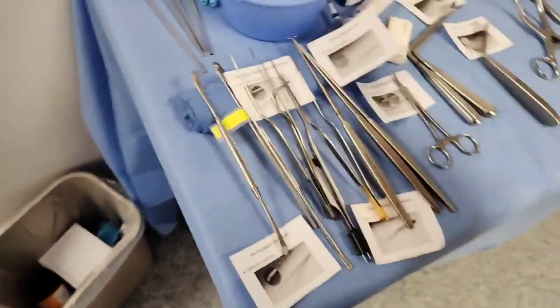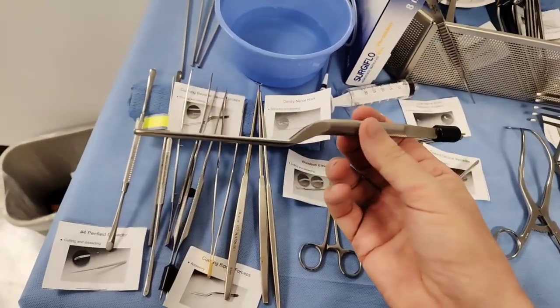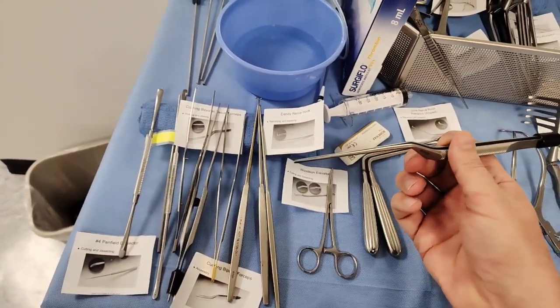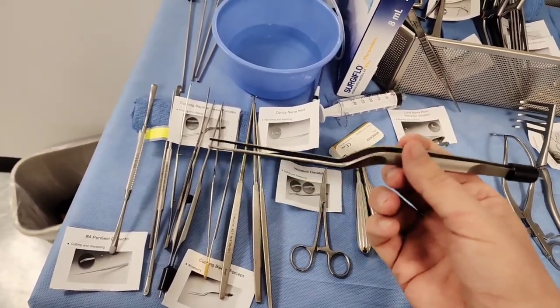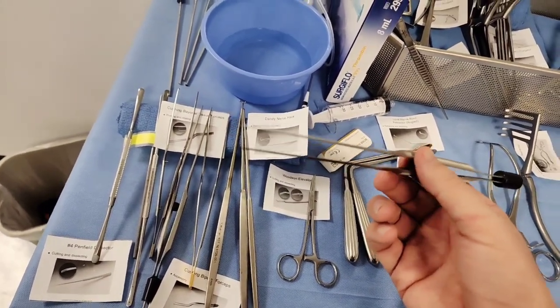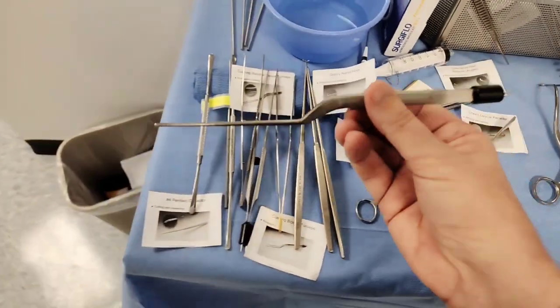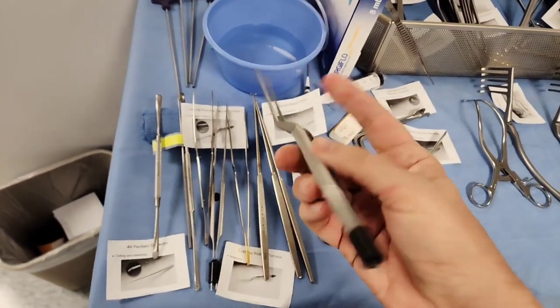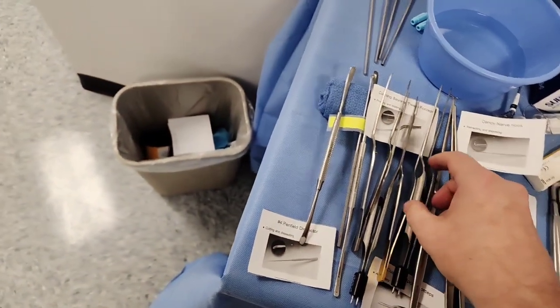Don't confuse that with this — this is called a Cushings bipolar forcep. It's a forcep, but it's bipolar. You know the difference between monopolar and bipolar: on a bipolar, there are two points of contact — the electricity doesn't travel through the patient. It just goes to coagulation and right to the other point of contact. Why is that important? Because you're working in delicate areas like the brain. With a monopolar, electricity travels to the dispersive pad and can cause alternative burn sites — we don't want that within the brain. The Cushings bipolar forcep is commonly used in neuro and even some vascular cases.